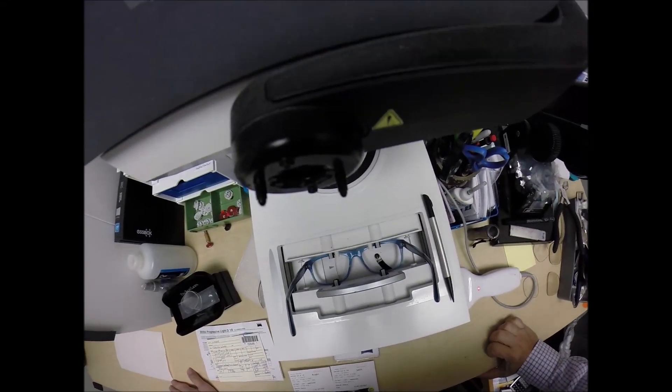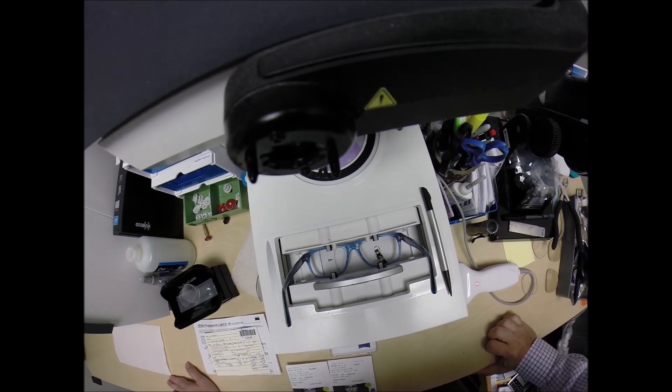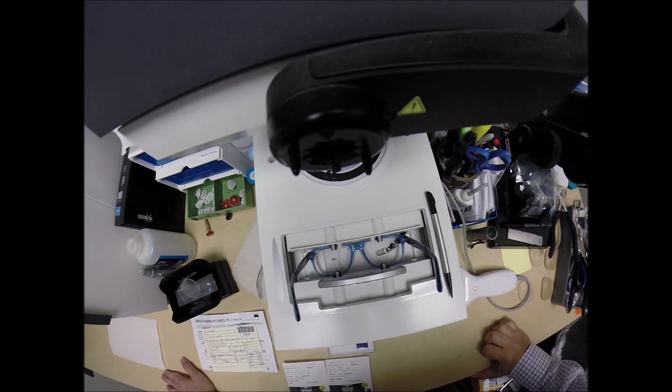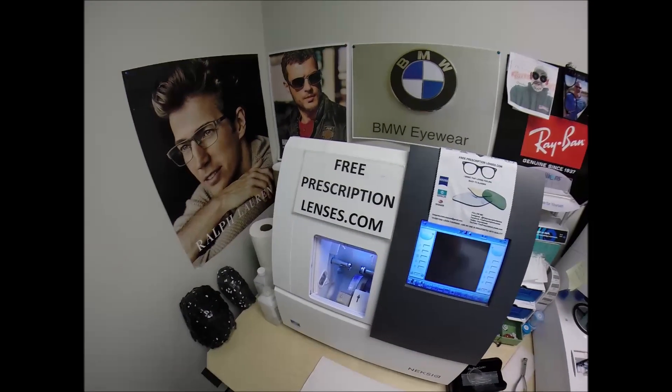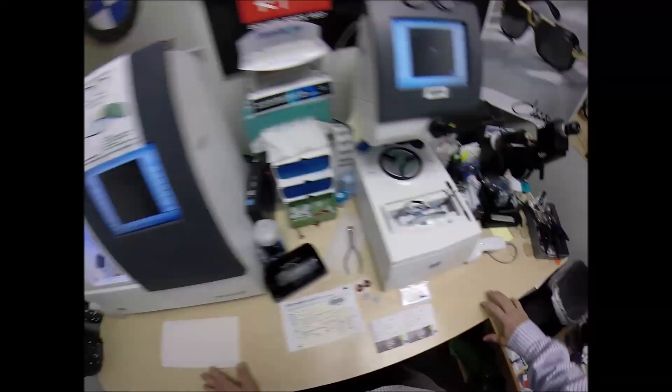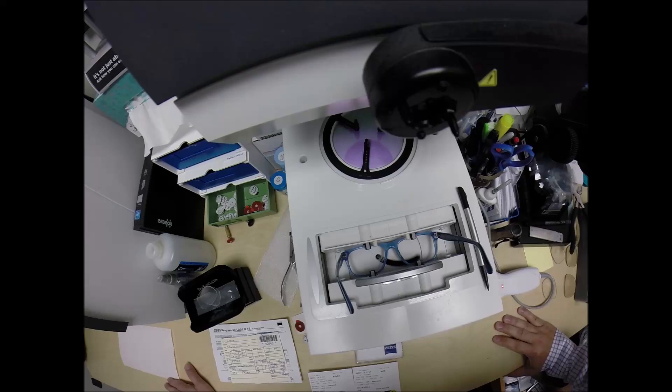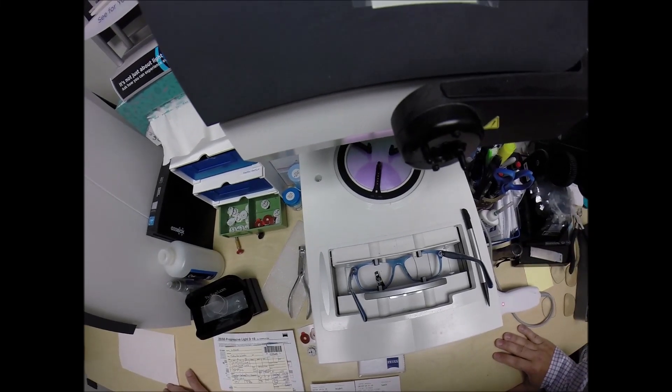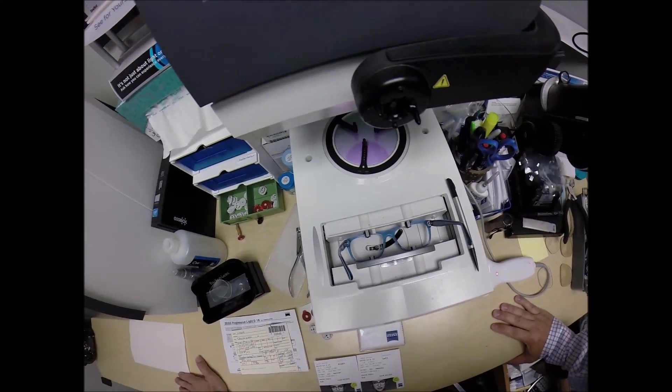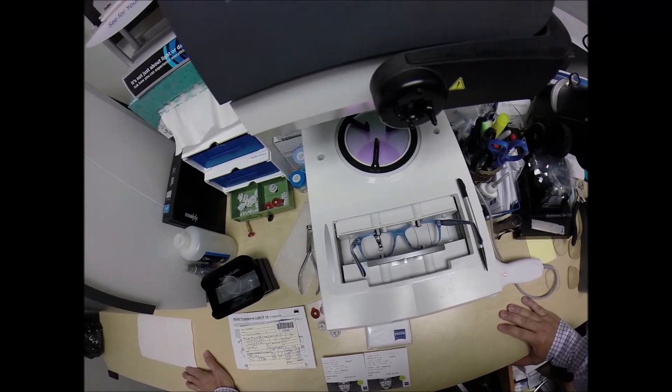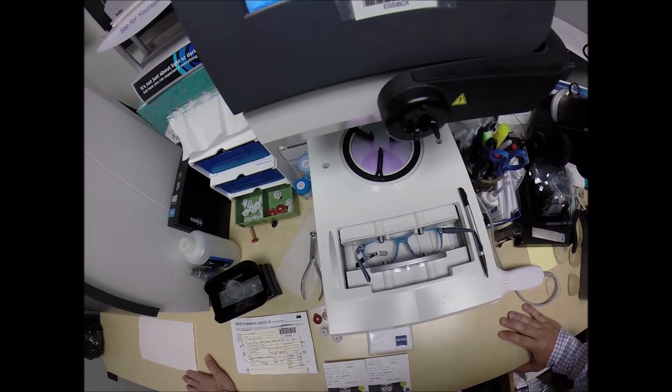A little stylus is going to pop up and go around and trace the inside bevel of the right side of the frame before doing the same thing on the left here at freeprescriptionlenses.com where everyone loves a bargain and no one is disappointed in quality. You buy any genuine authentic Ralph Lauren polo frame that I sell and you'll receive one free pair of clear single vision prescription lenses or non-prescription fashion lenses.